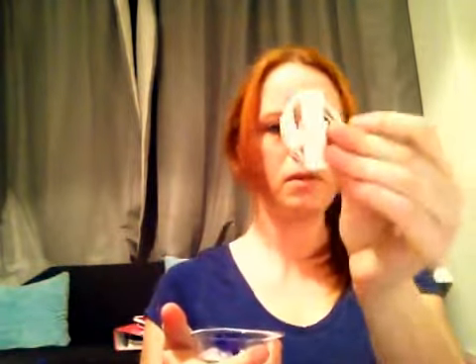I have to change my cannula every couple of days, so I'm going to do that now. The cannula comes in this little package and it comes with a few little bits and pieces. It comes with a spare tube but I don't need to change my tube at the moment. I've also got this little inserter device, and this puts the cannula into my stomach.